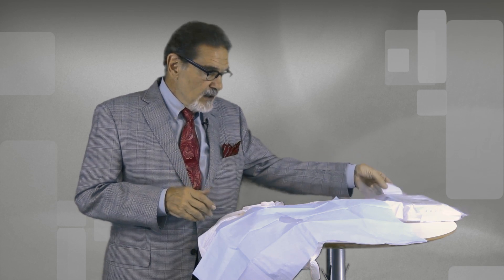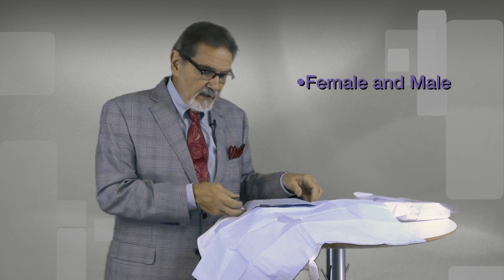I do want to point out that each of the male and female packs are basically color-coded with the post-insertion instructions. We use the lavender for women and of course blue for the males so that it's easily detectable on the shelf in case you can't read the male or female sign. Thank you.